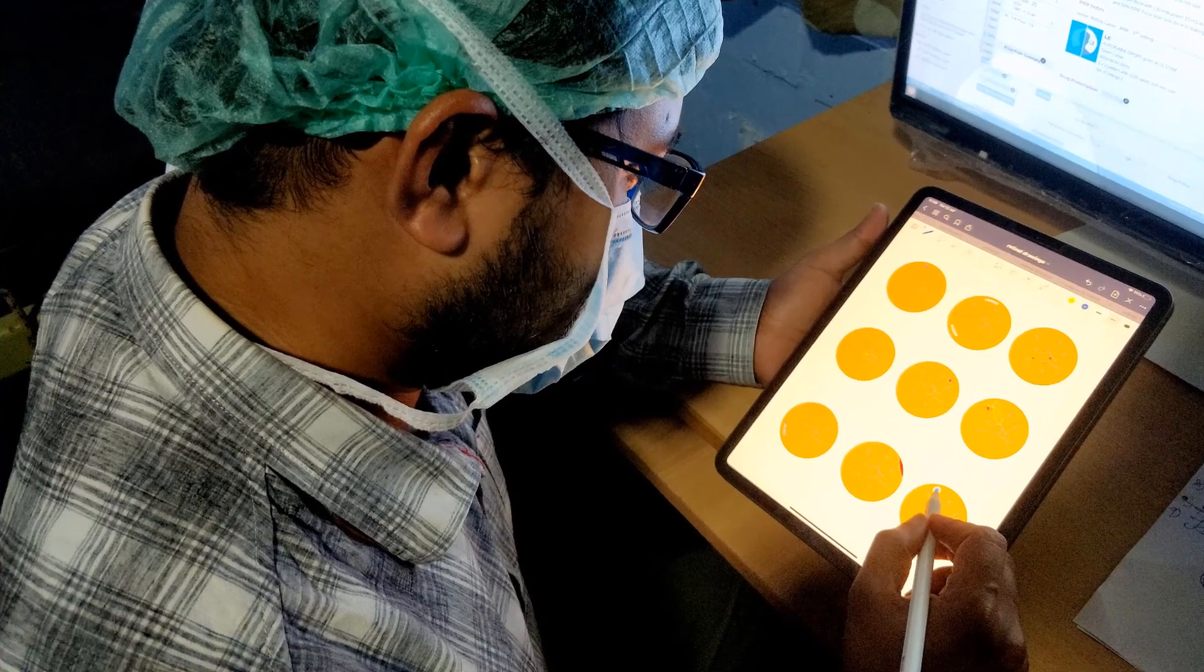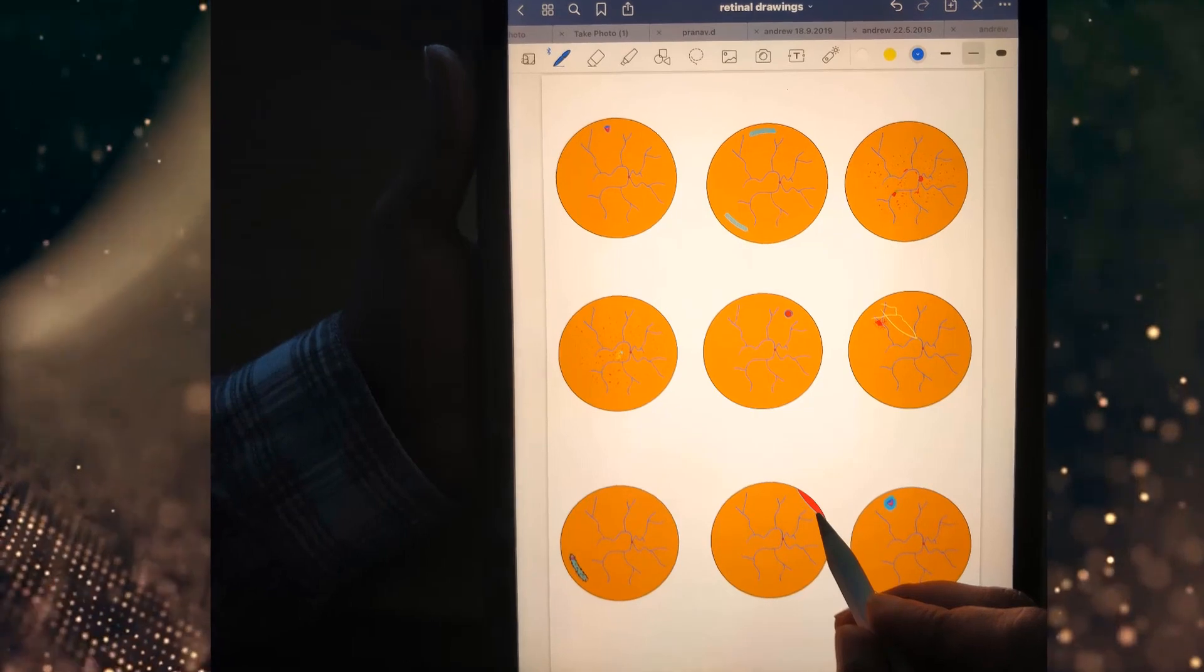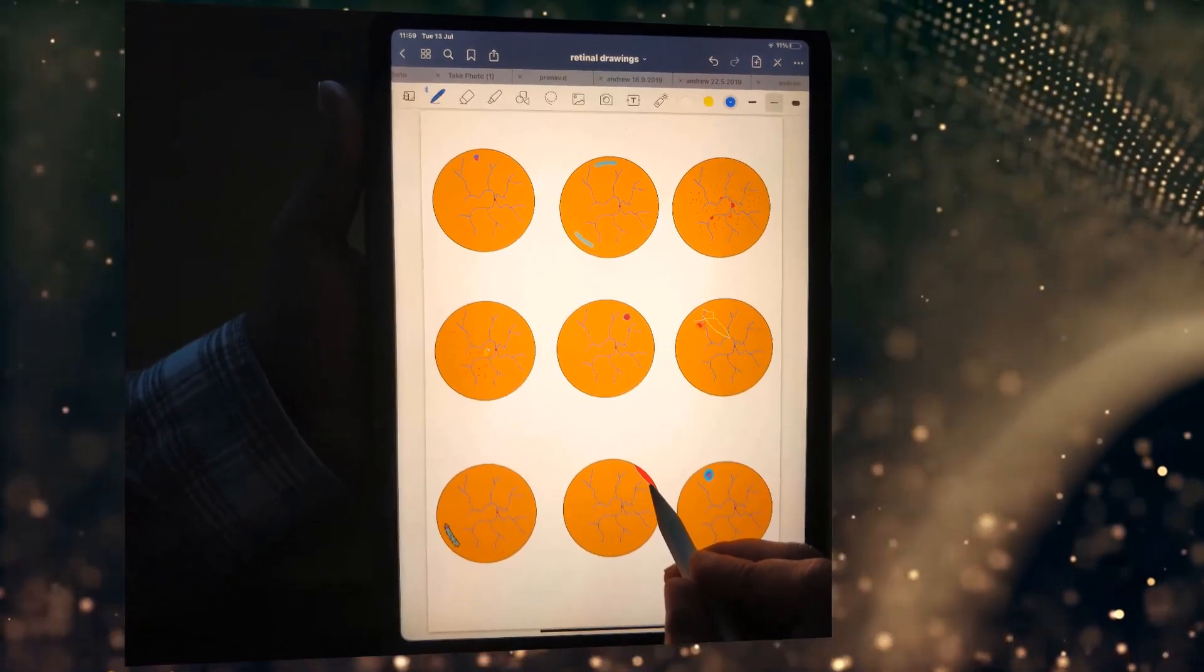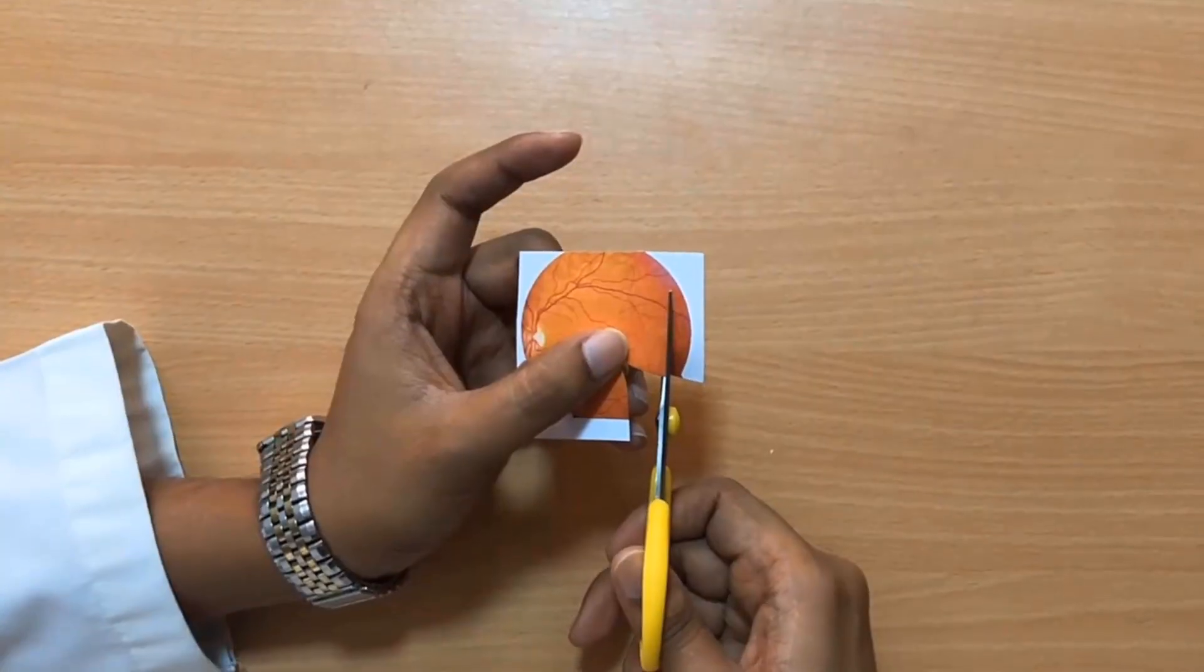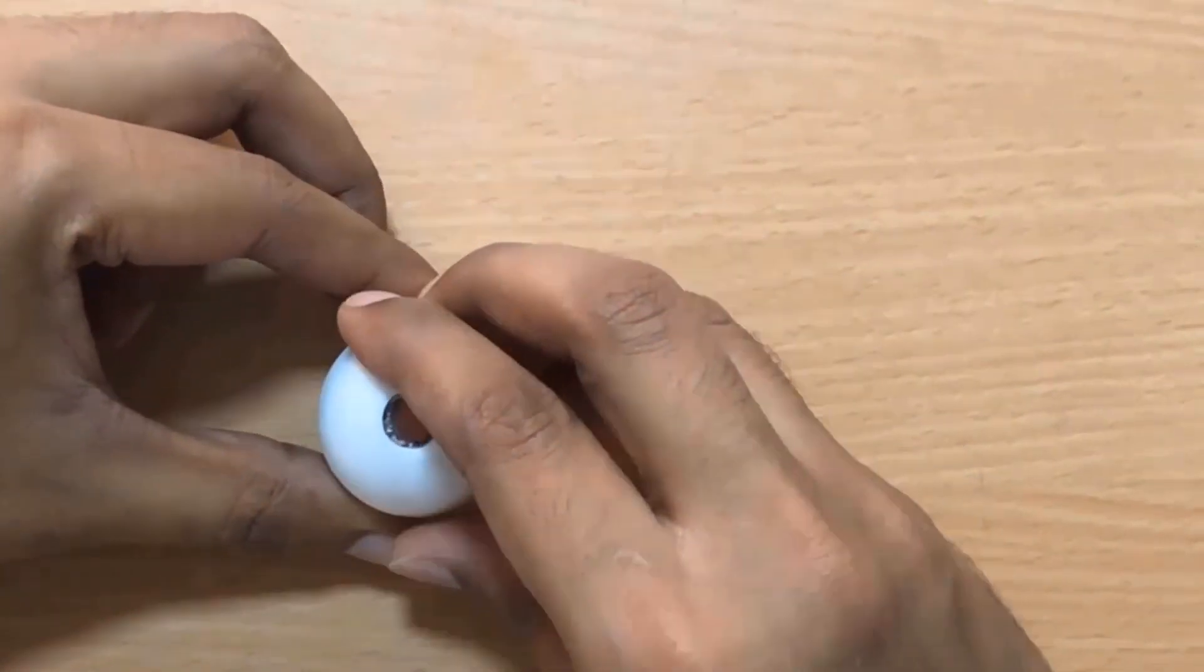The image is stored in a portable graphics format and 9 copies of the retinal diagram can be printed per A4-sized paper. The retinal diagram is cut in the form of a circle. Four slit-like apertures or wedges are made in the corners and assembled inside the ping-pong ball.